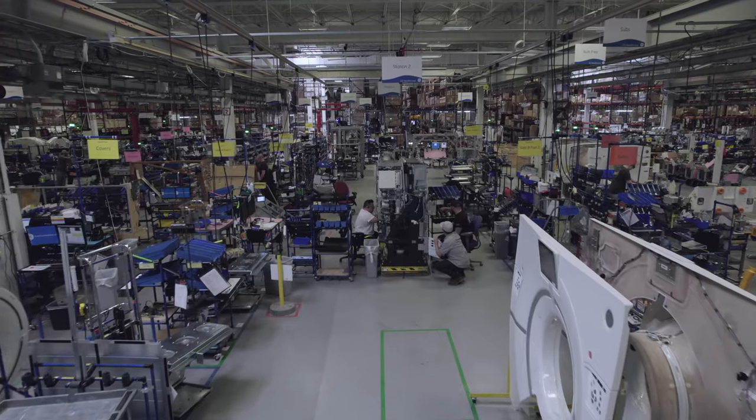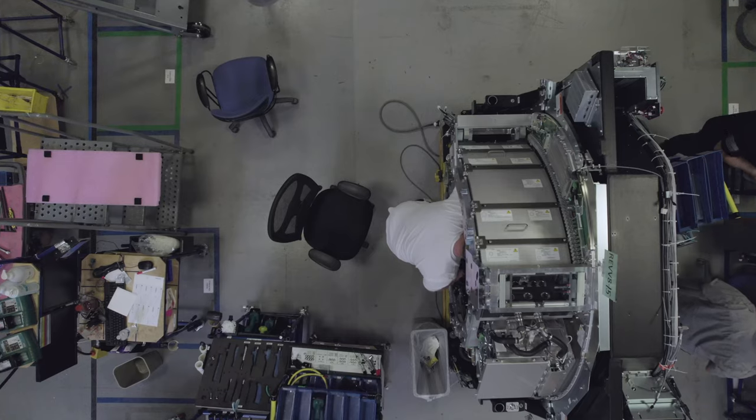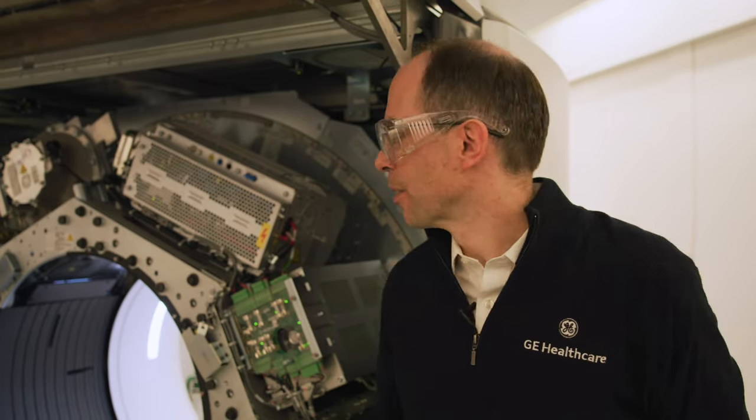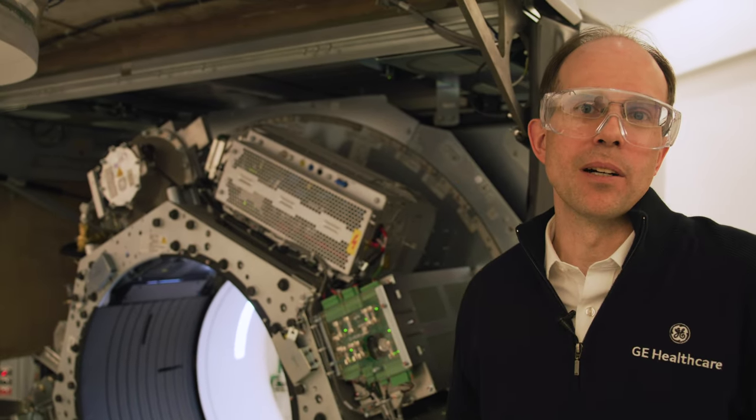Chad, what are the challenges in actually just making a normal CT from a safety perspective, from an efficiency perspective? From a CT design perspective we have many different things we have to think about. First, you saw that it spins, and it spins at forces that are above 50 g's. A typical rocket launch would be about 7 g's, so we're well above that.